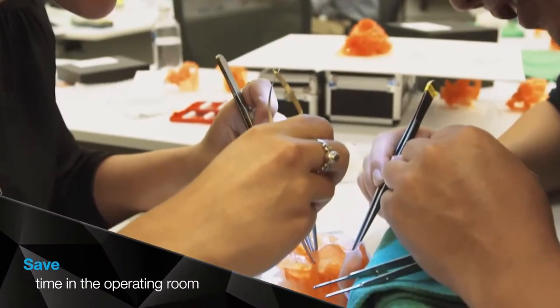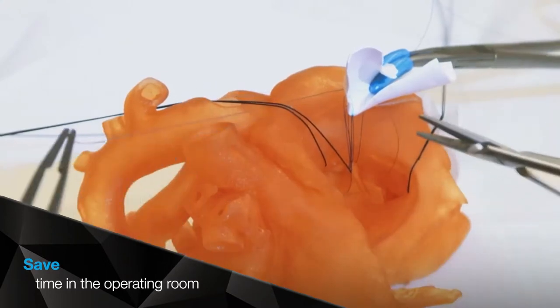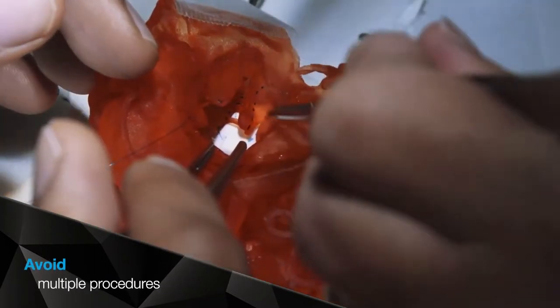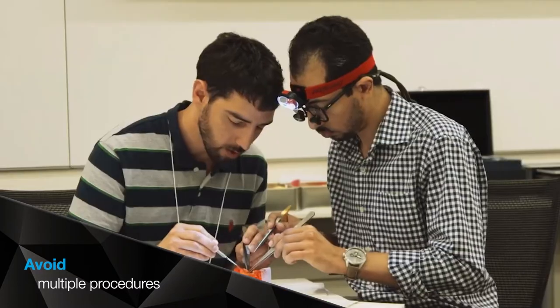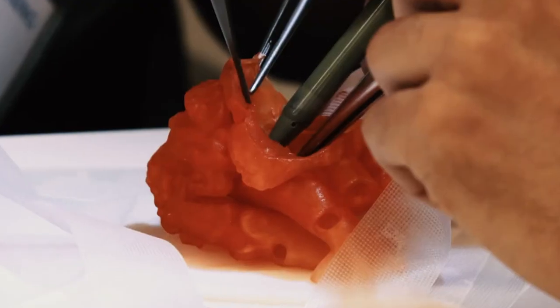Academic medical centers, hospitals, and medical device companies can create realistic testing environments and train in settings that are as close as you can get to the real thing.